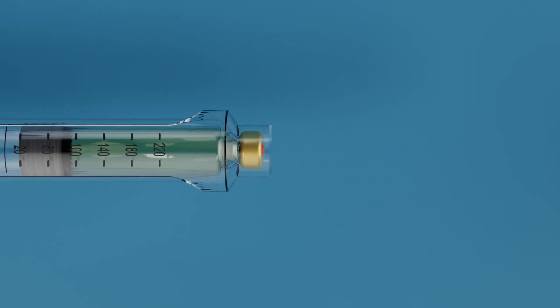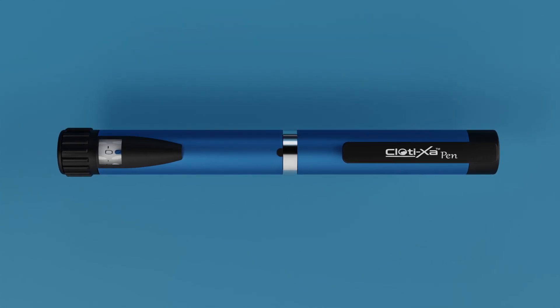Always remove the needle before remounting the pen cap. Never store the pen with the needle attached.